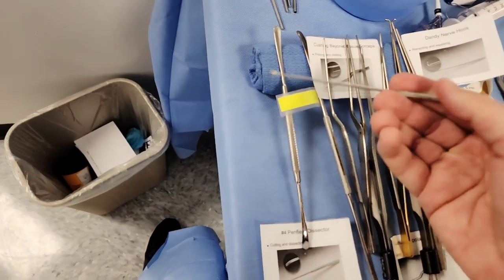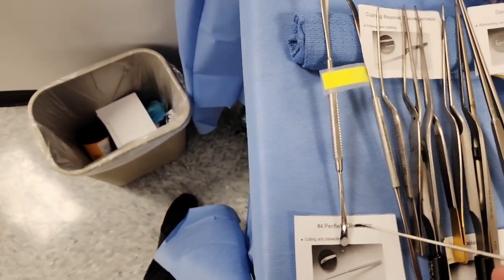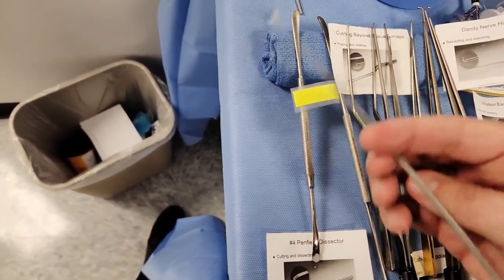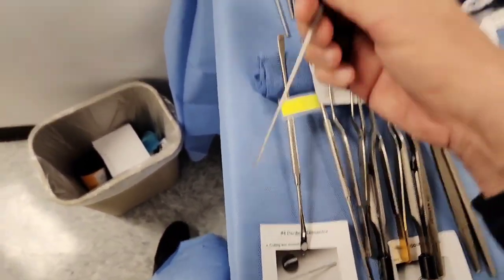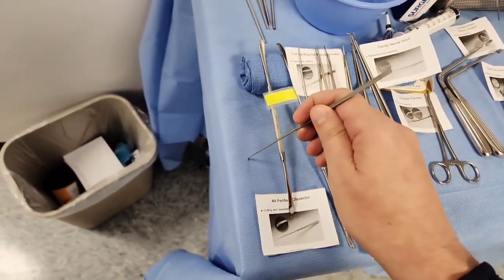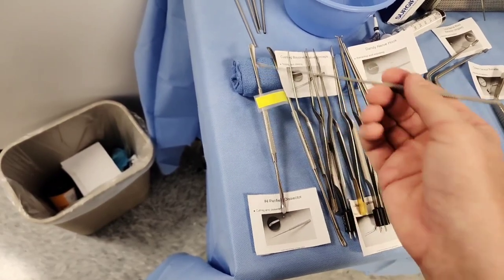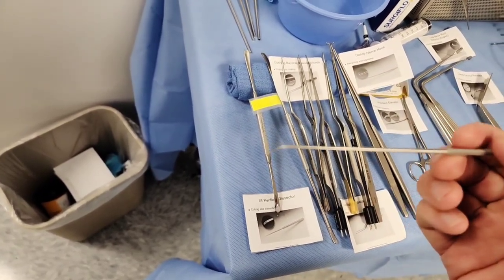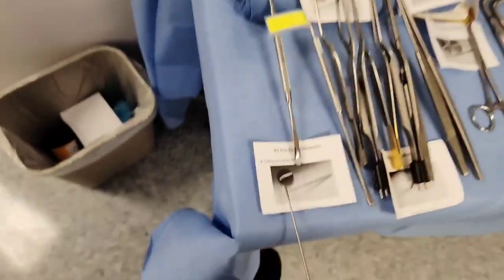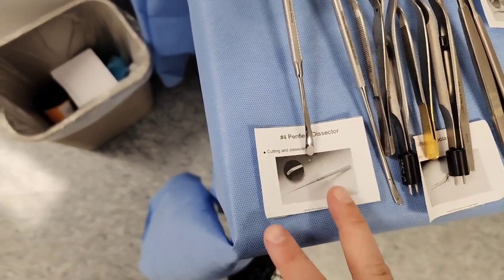Looking at this one here — this is a Freer. It's in the same Penfield family, the same category. They're all elevators or dissectors. With any of the Penfields, you're in the back trying to chip away at osteophytes. There's a different purpose for each — sometimes they're straight, sometimes they're small. A commonly used one is the Penfield number 4 dissector.